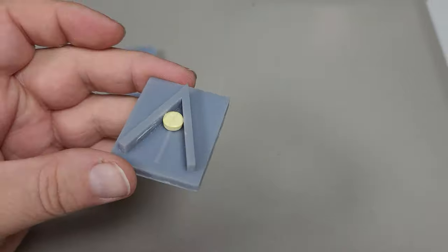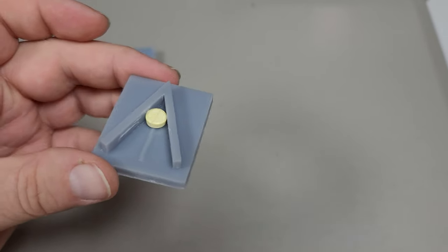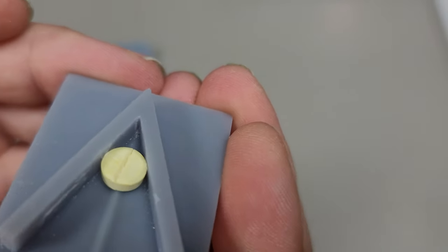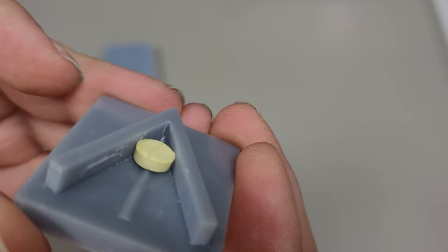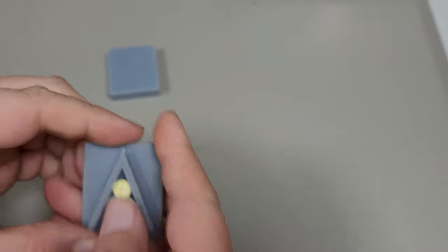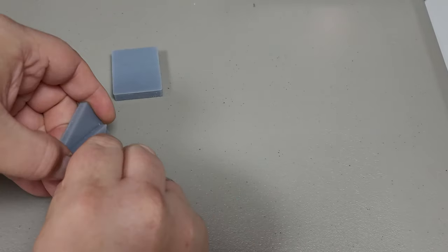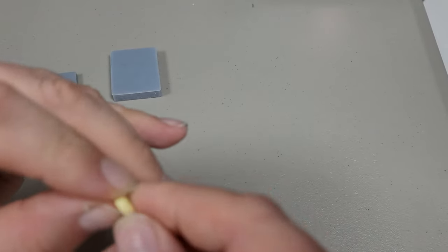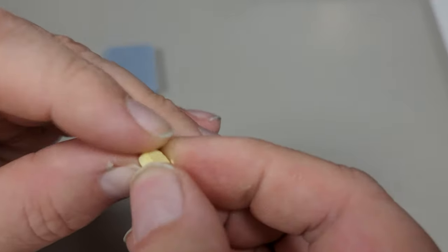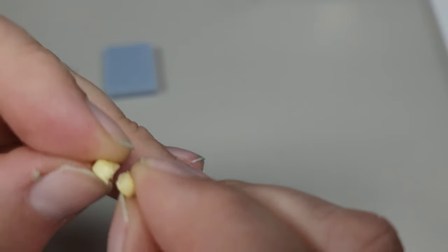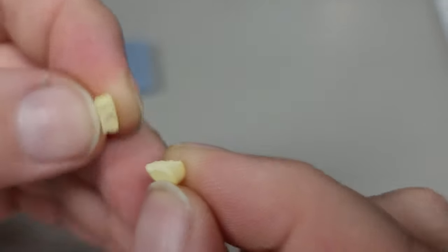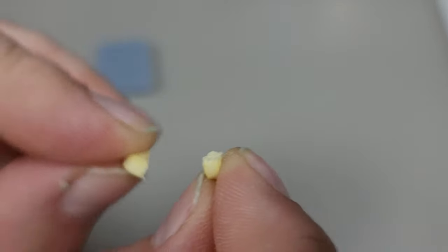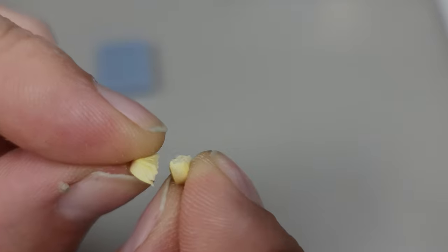It's almost perfectly cut. It's now pretty well split in half. Pop it out of there, let's take a look. Yeah, very nice. Very, very halfsies.